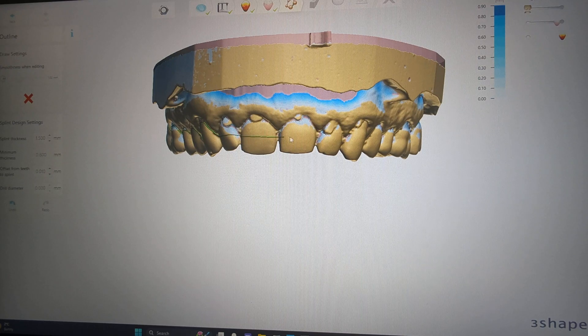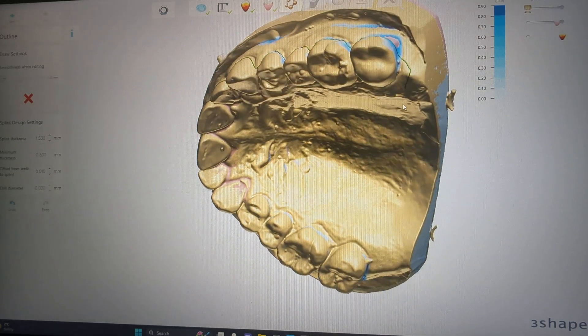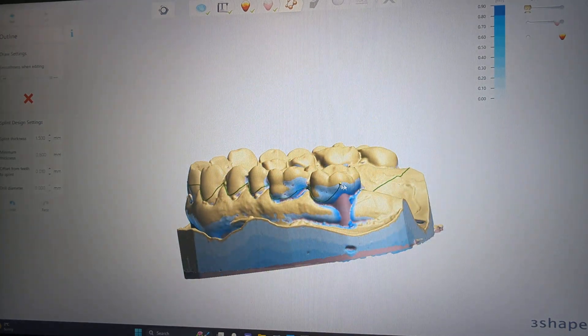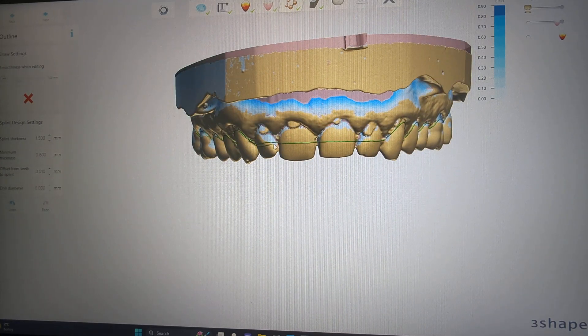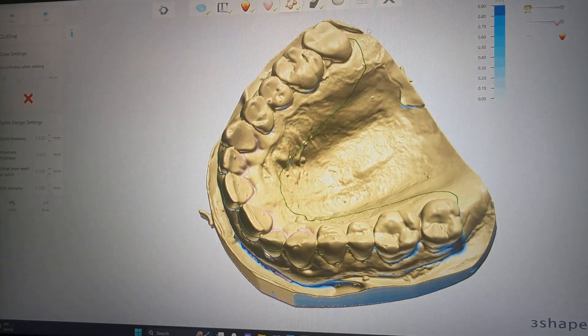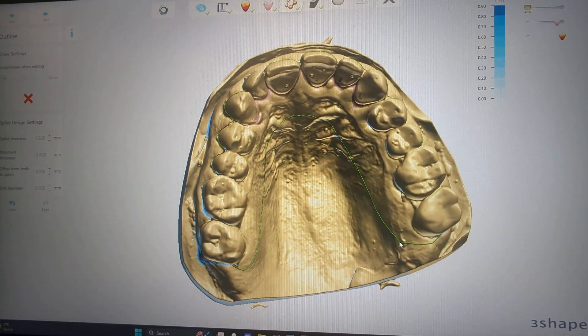Get a nice labial view here, go across and then start your scallop again. What we're indicating here is the actual line of the final appliance to be manufactured — we're just creating the outline. We'll join the two lines here, and this allows us to go back and see how our lines actually look, if they're all straight. I like to take a little bit of extra time here, because if I can do a couple of clicks it's a lot faster than trimming manually. Nice and symmetrical as you can.